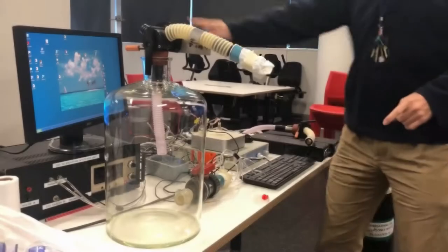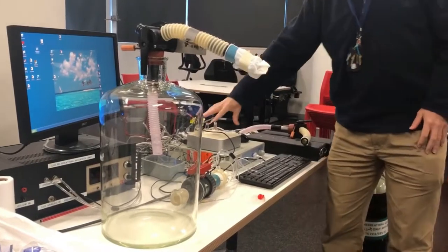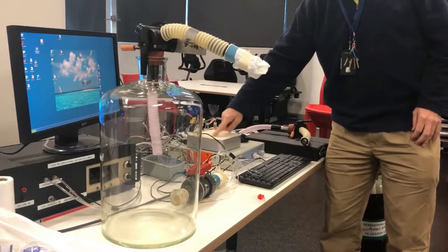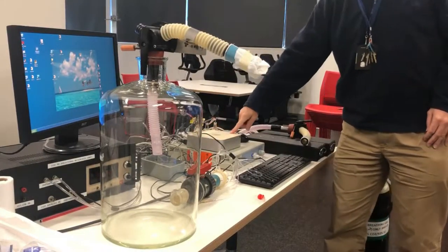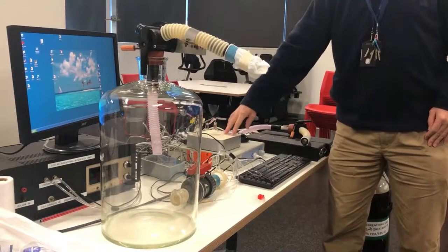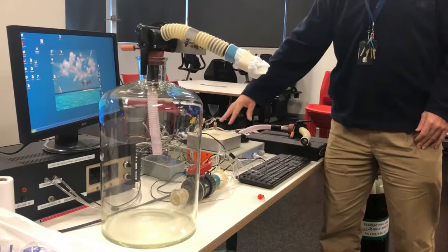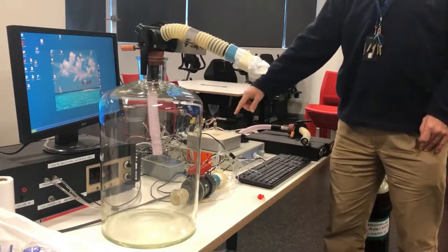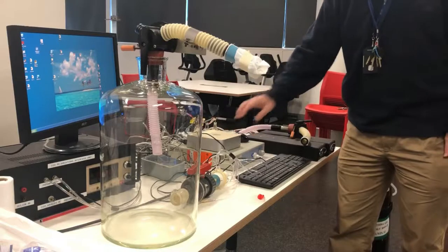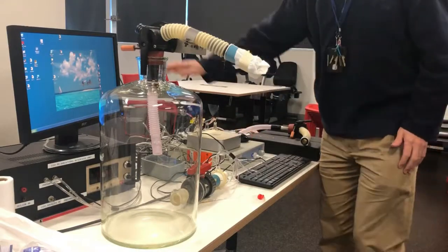To set up the rebreathing demonstration we have to use this computer, a little mini Apple computer. We're trying to get the software rewritten so it can be used on any computer, but at the moment that software is only on this computer and we don't know the components that need to be installed to use it somewhere else. So this is the computer that has to be run.